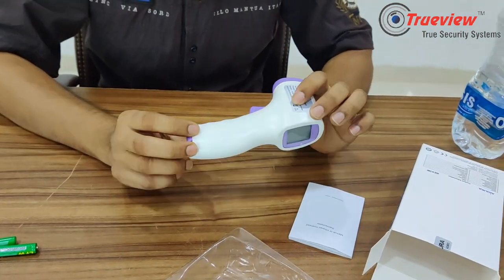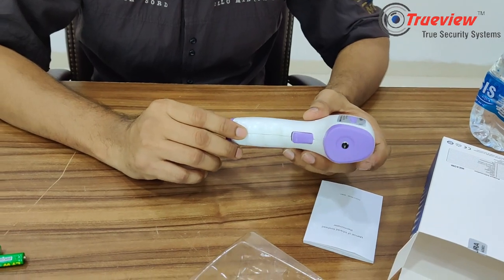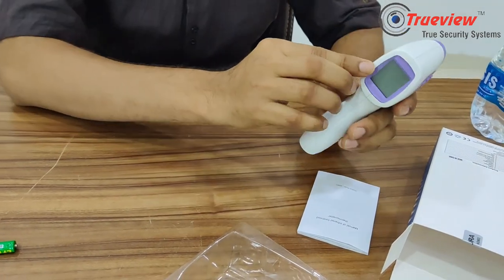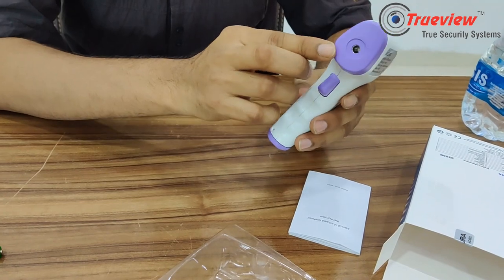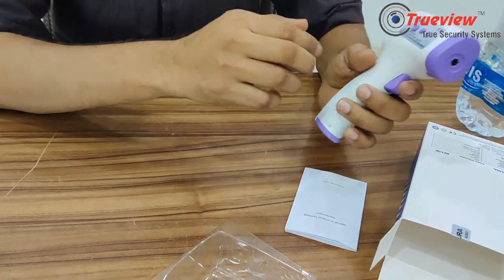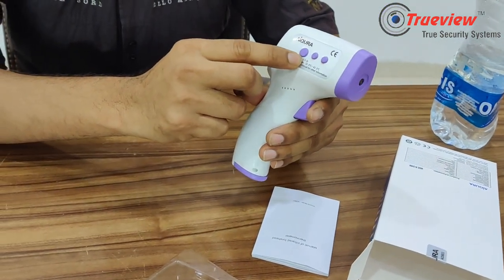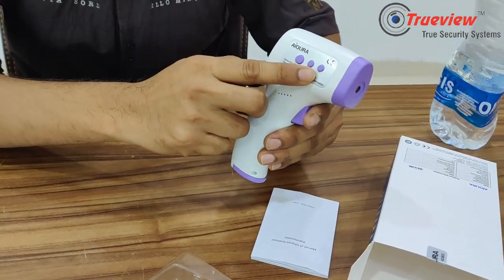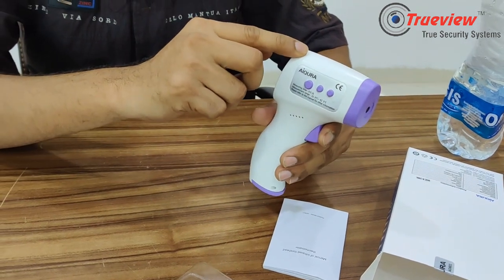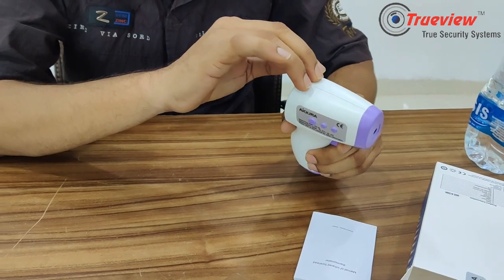I am going to give it a demo. There is no battery included — you have to purchase a battery separately. There is a display here, a thermometer sensor, and an infrared sensor. There is a button for screening and a mode button. If you check the people count, there is an internal memory that stores 16 records.